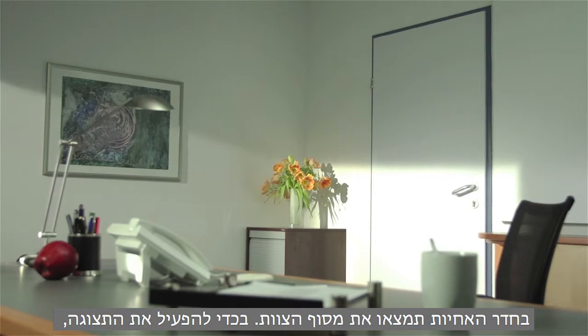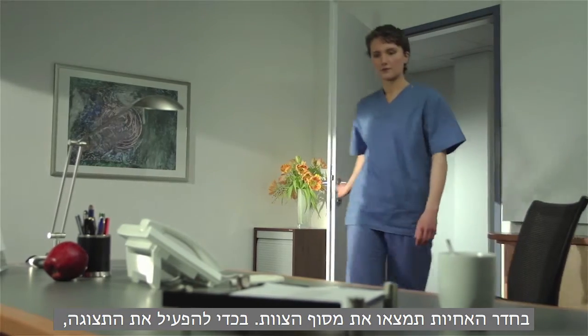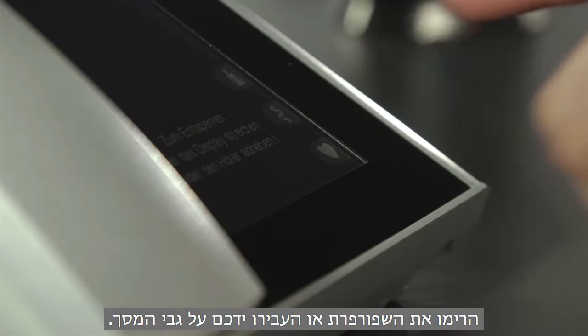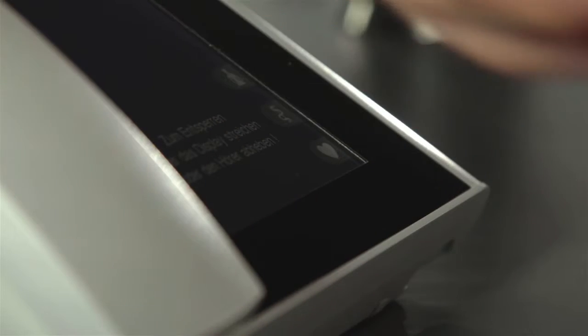You'll find the staff terminal at the nurse's station. To activate the display, either lift the handset or swipe across the screen.